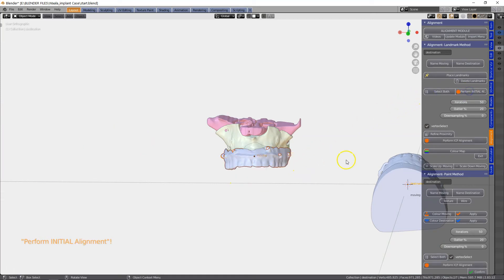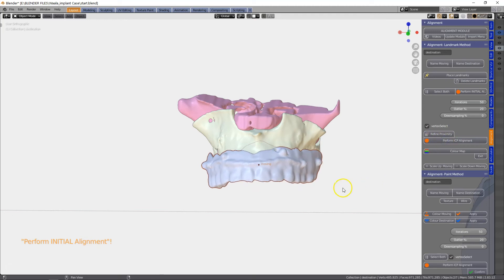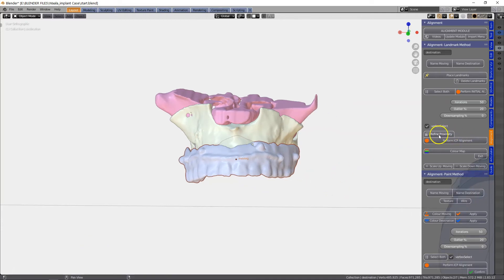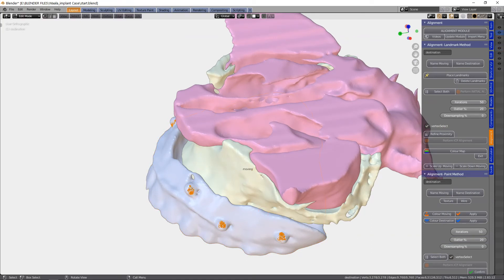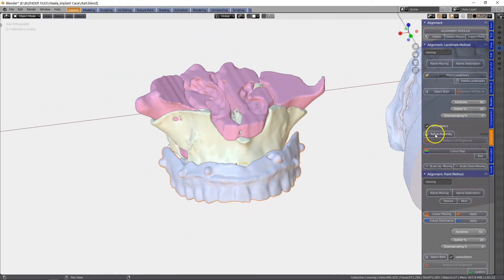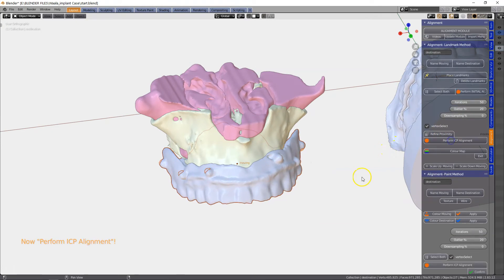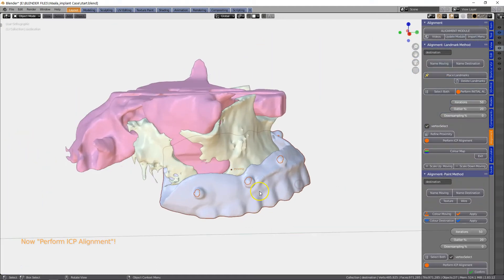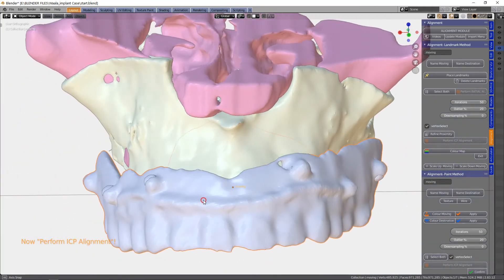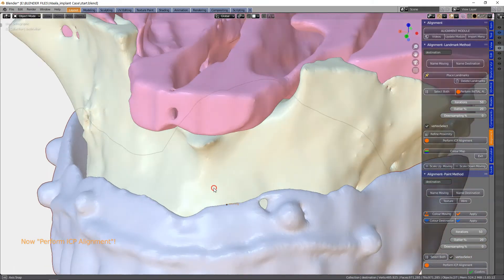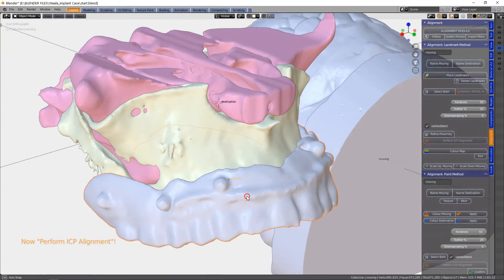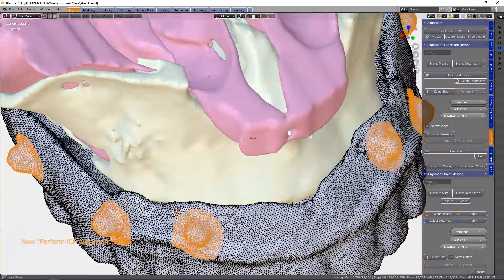Select both. Perform ICP — that's good. And perform the ICP. Perfect so far. We can refine it, but I don't think it's necessary because we've got quite a big selection going on over here. I will put it in nevertheless, but I don't think we're going to get a different result. Maybe a little bit different. I think the last one was a little bit better — I'm going to go CTRL Z backwards. We're going to leave it like this.